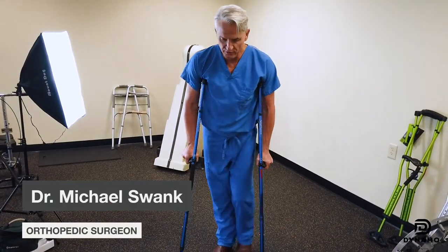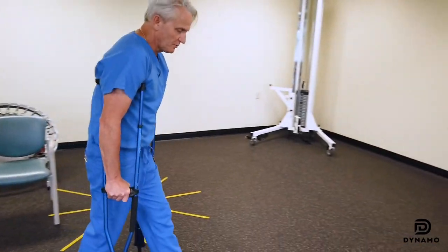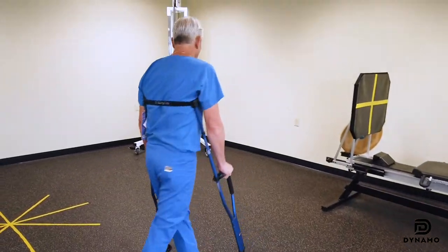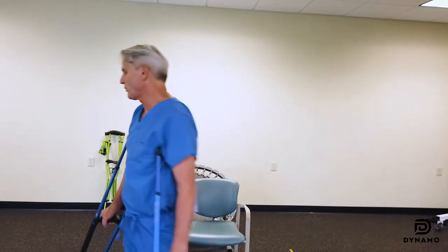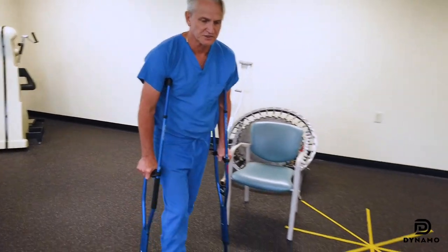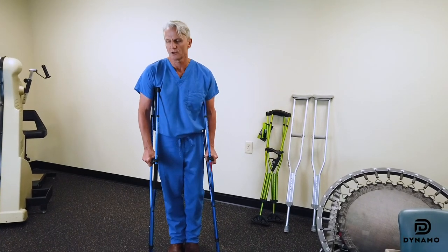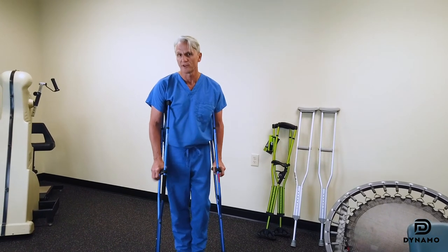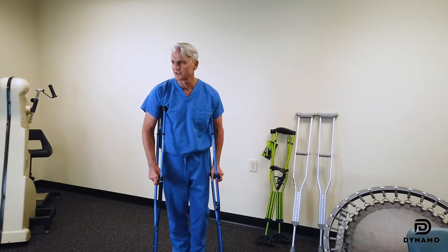The support across my back allows these to function both in unison. You can see it supports my whole spine so that I'm not leaning forward in the same way I did with the other crutches. Putting these together makes it function almost — not quite as stable as a walker, but almost as stable as a walker — and that'll allow kids to be much more normal and have something to talk about that isn't a stigma.